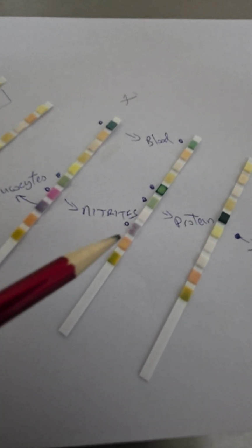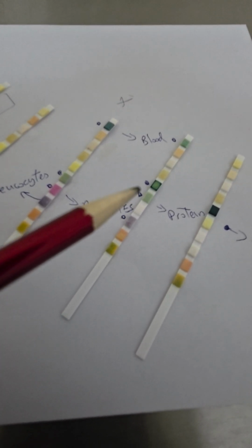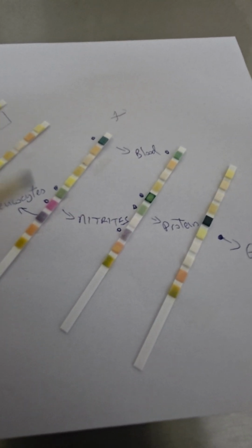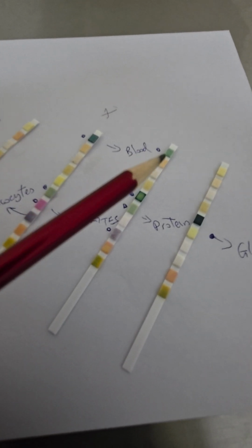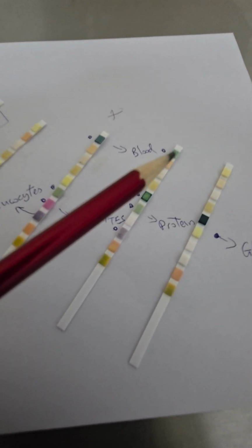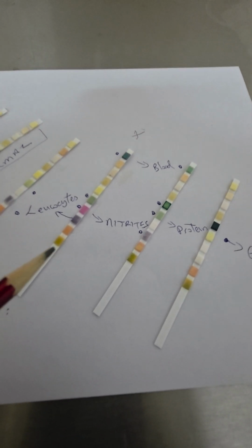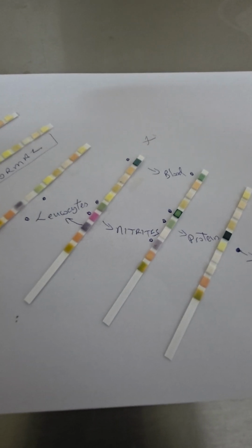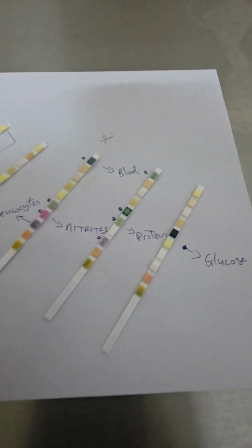This one also has leukocytes. This one also has protein and glucose, and it seems as though because of the whole aspect of being under stress, there's blood also being produced and passed in the urine here as well. You see, many times we find a lot of people having infection, having inflammatory issues in their urinary system, they pass blood. This is as much as we can say right now.